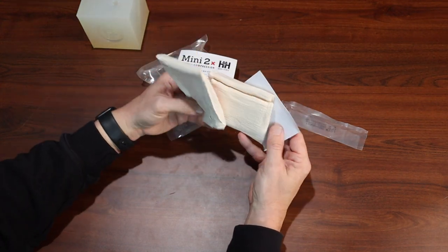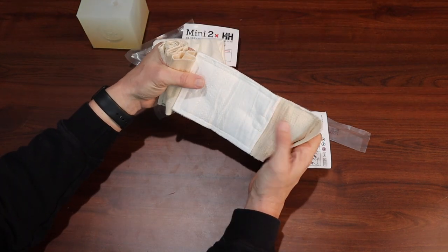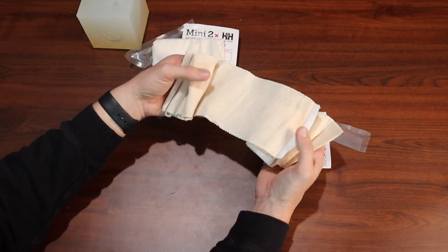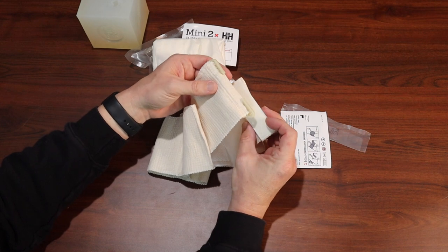Here is your rolled gauze. Take a look at the pressure bandage — we have an absorbent pad, and we also have our stretchy material here that's going to be for the compression bandage. And then you have the clip that's going to hold it in place.